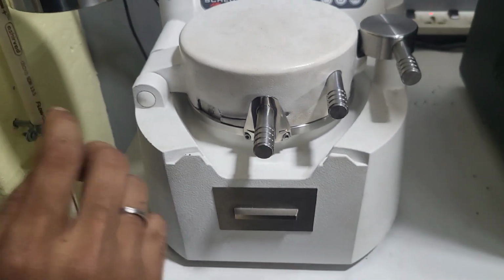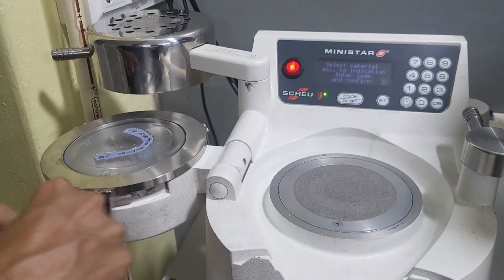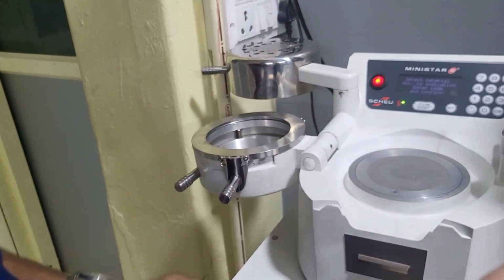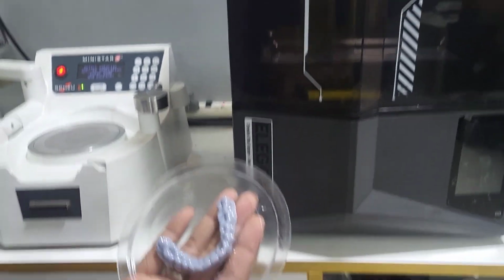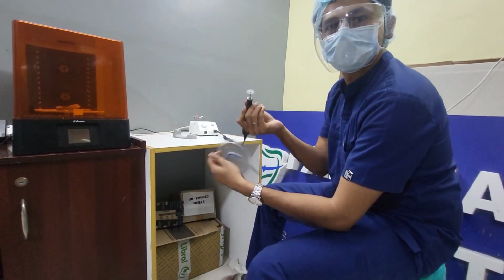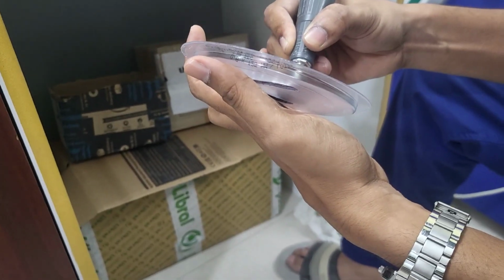We have to release the air from the machine, and we have to remove the heater cap, and now you can see the thermoformed sheet, and the model is in the thermoformed sheet. And the next step is trimming and retrieving the aligner from the model, and the doctor is using a face shield and mask and other protection also.